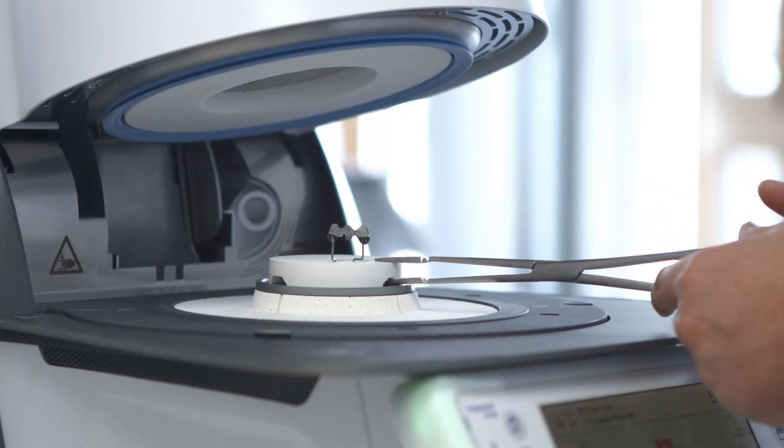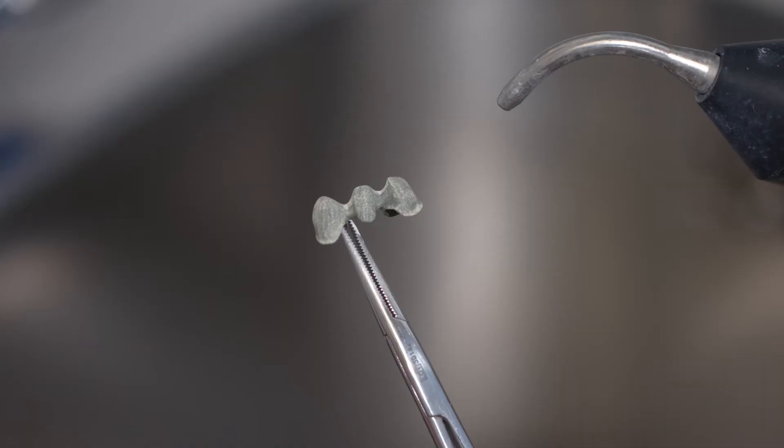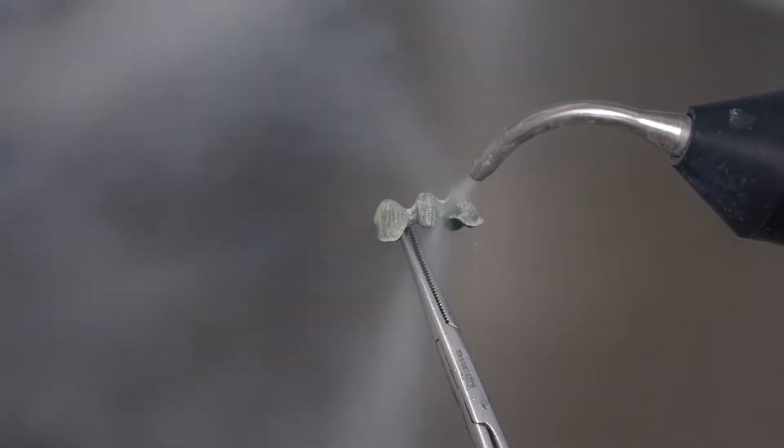After firing and cooling, clean the metal framework with the steam jet and subsequently dry it with oil-free air.